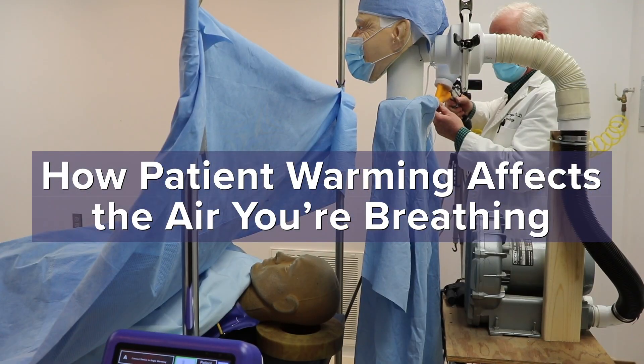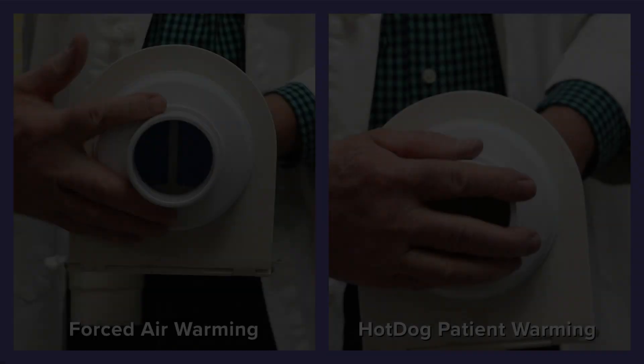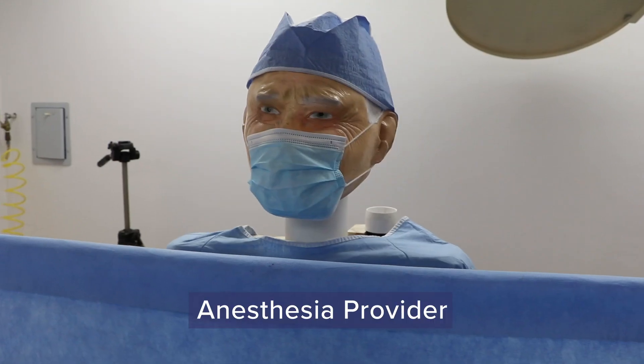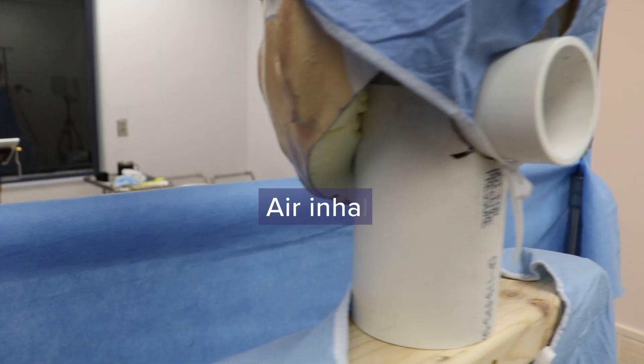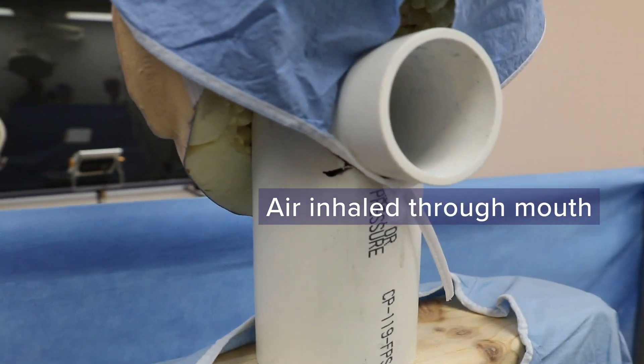An eye-opening experiment was conducted in an operating room laboratory to show how patient warming affects the air you're breathing. The results are breathtaking. A mannequin wearing a surgical mask simulates the anesthesia provider. Air is inhaled through an opening at the nose and mouth.